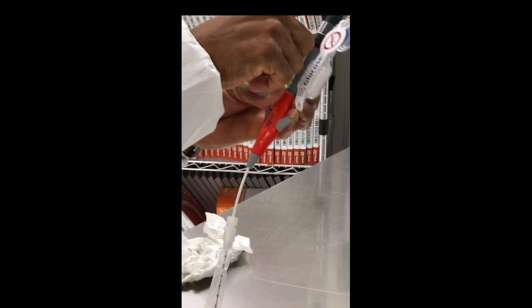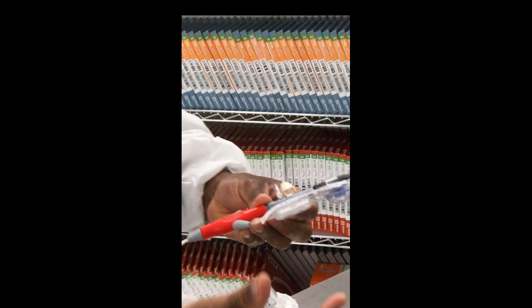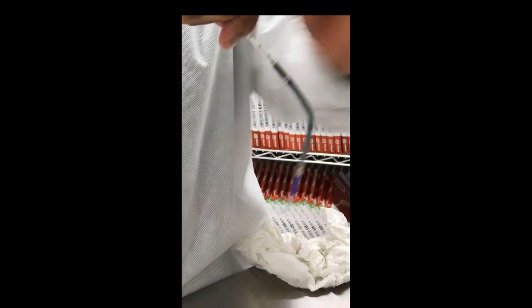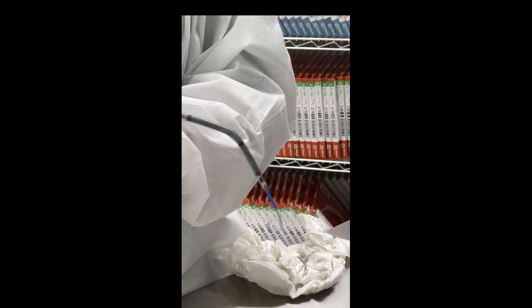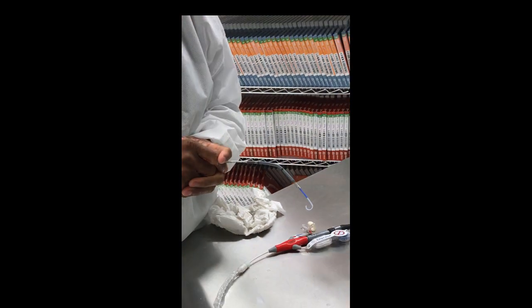We said Performance, Placement, and the third is Protection. You've got the inlet, a reservoir, and a filter. We're going to bring in volume for flushing — we'll flush it with something thicker than blood. How can you create a wall to protect the motor? You need something thicker than blood. Dextrose — specifically D5.